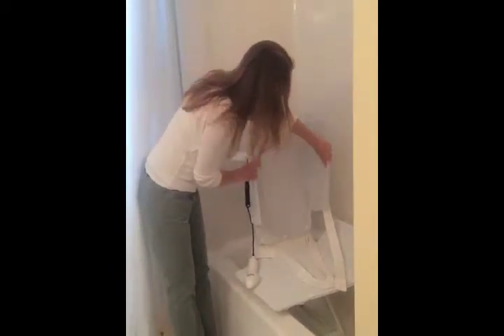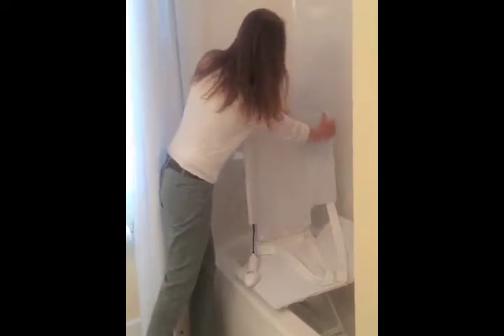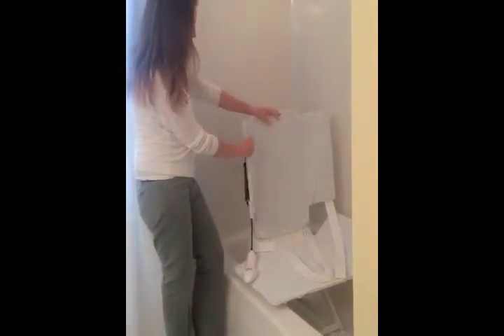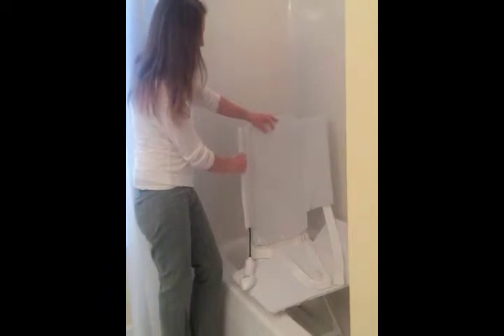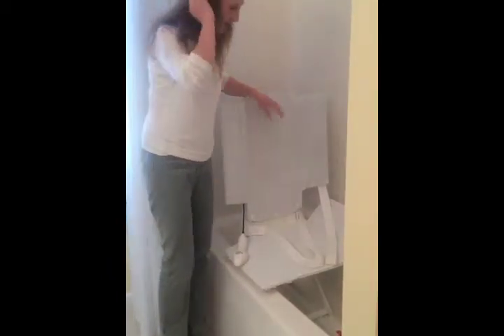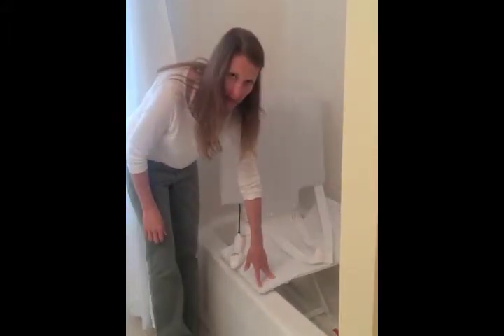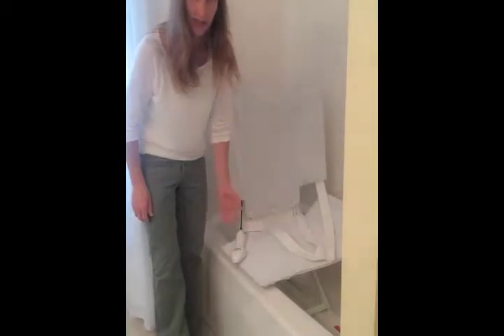The flaps go back — pull them up and then push them back. There's a little catch on them, so if you want to adjust them, pull them up and push them back to whichever angle you'd like. The nice thing about these bath lifts is they've got flaps that go over the top, so it makes it easy to transfer into.